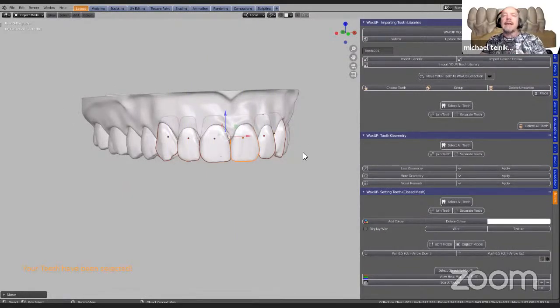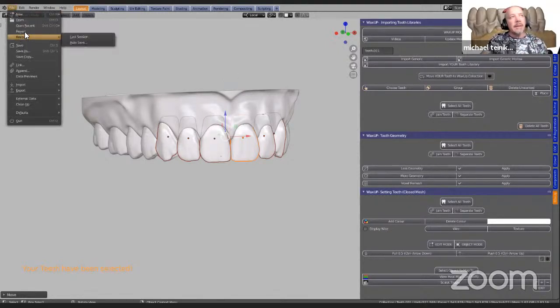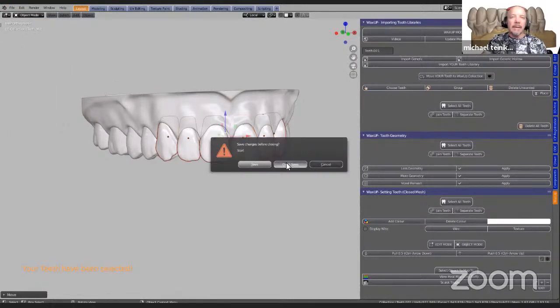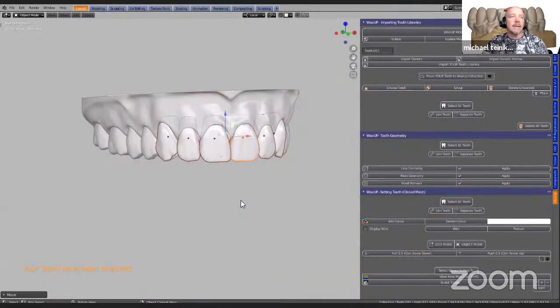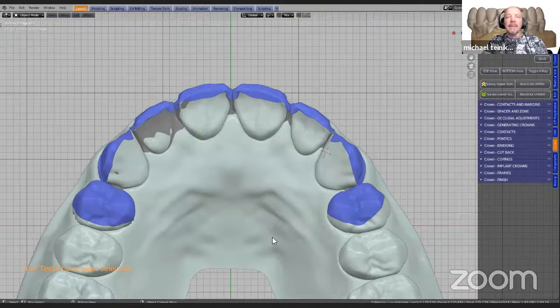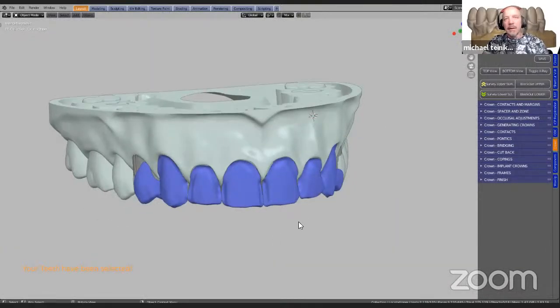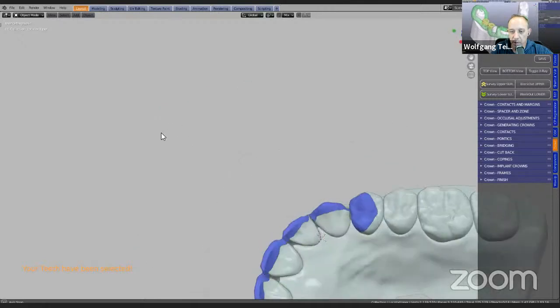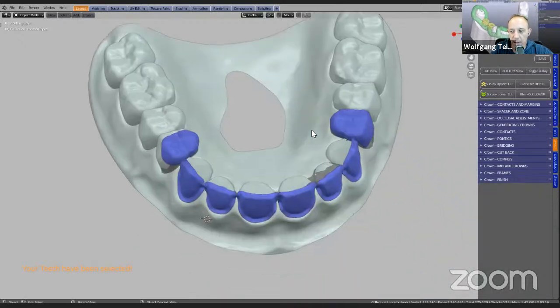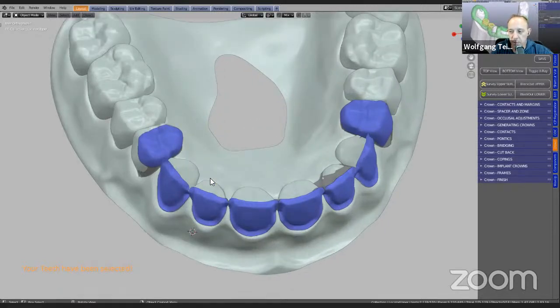This is the first section, but we can always bring the teeth in at a later step. So with that being done, I'm going to go to my next file. Remember, we've just blocked out these surfaces. If you've got your own tooth collection, feel free to bring those in. Remember, we use solid teeth for crown bridge, except if you want to add gum for hybrid dentures — for that we would use open mesh tooth libraries.